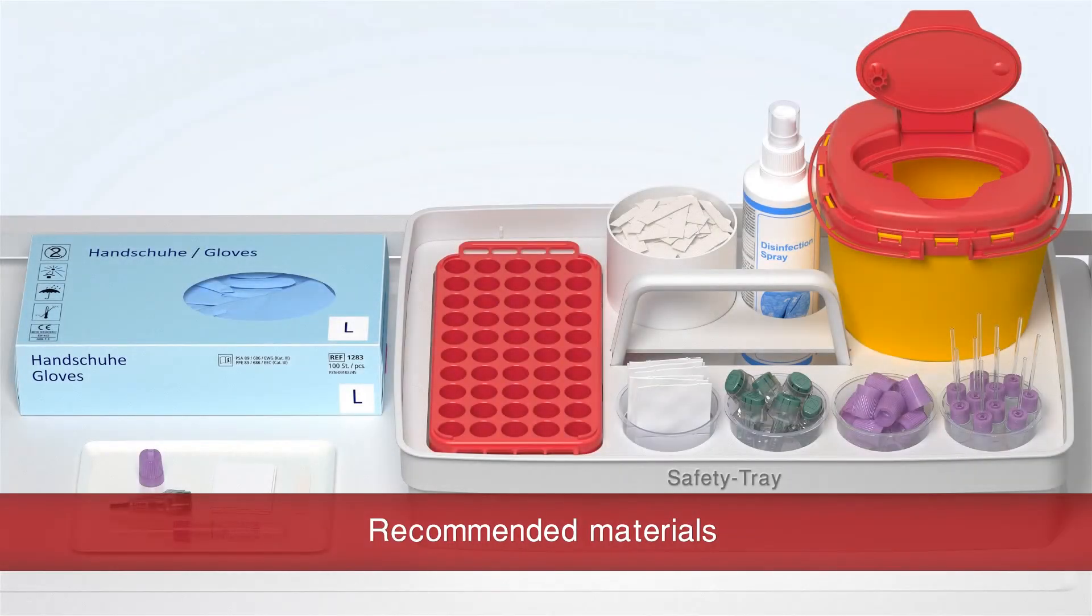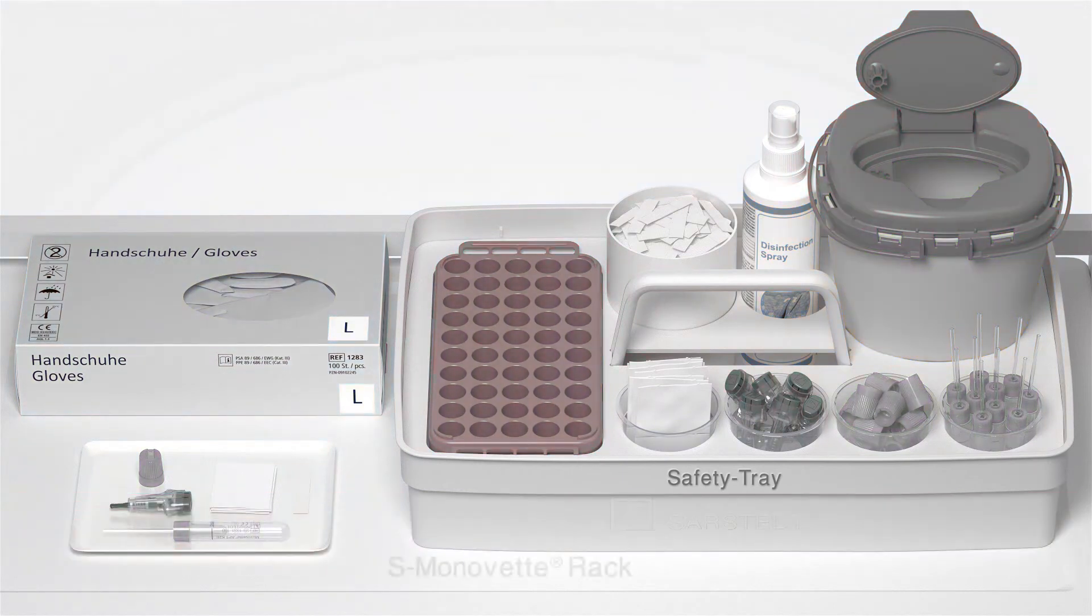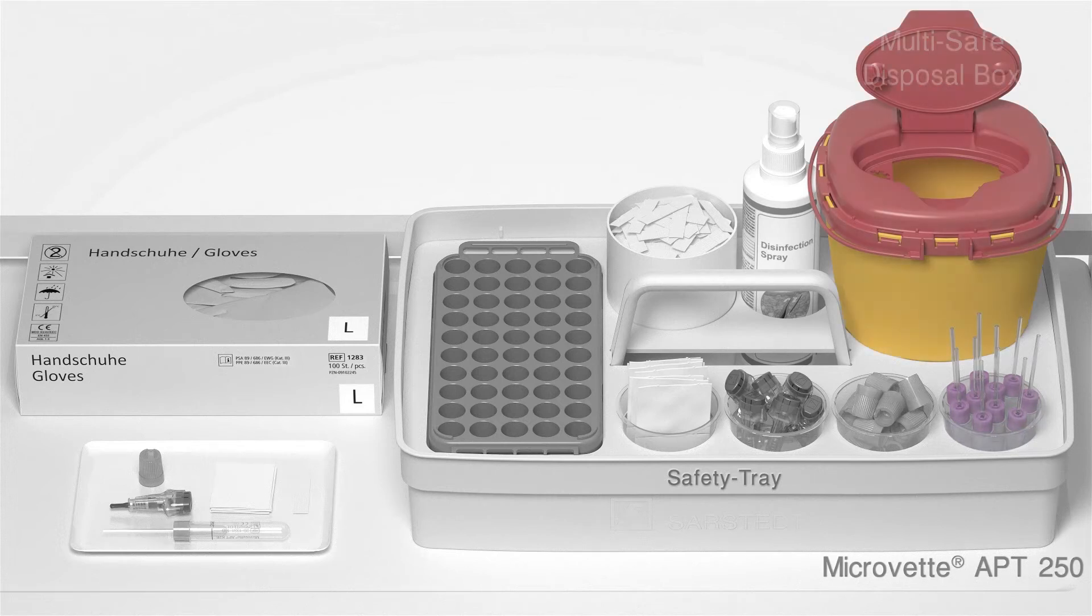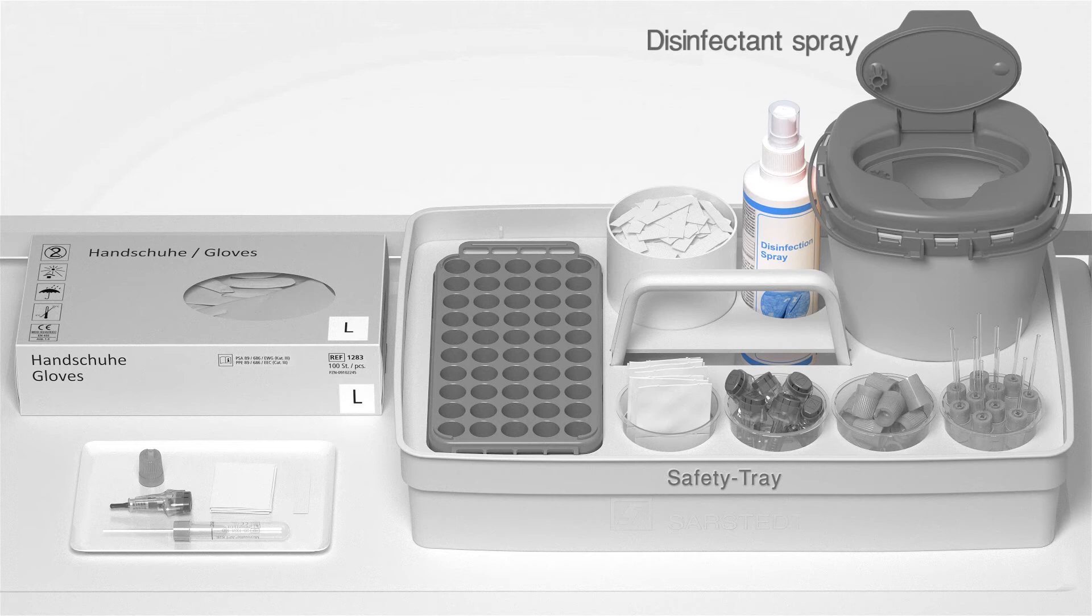You will need the following items: S-Monovette rack, swab, safety lancet, membrane cap, Microvette APT250, multi-safe disposal box, disinfectant spray, plaster, and gloves.